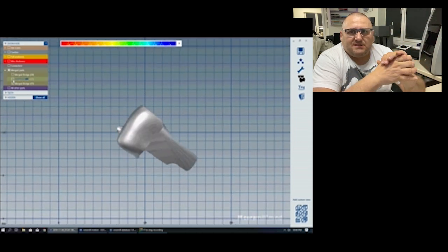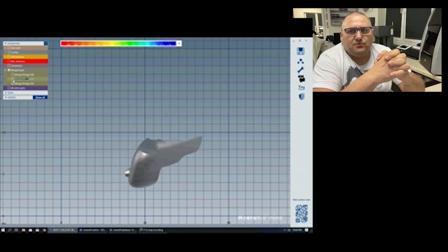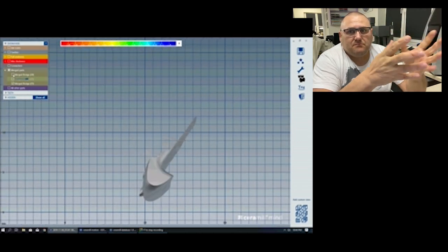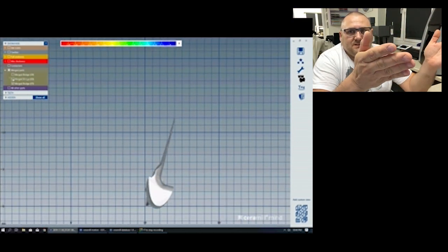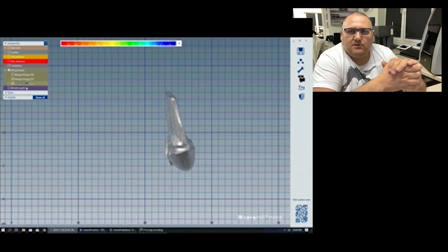This is the easiest way — the easiest way for preparation of the post and core with non-parallel roots. Two, three, four roots non-parallel — it does not matter; this way is the easiest. Please be patient if the system tells you this is not a good place for cutting. That's all — thank you! All the best for you. Stay in touch. Bye bye!